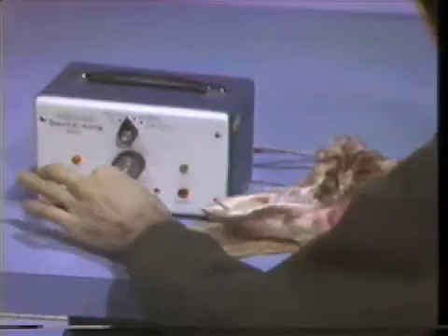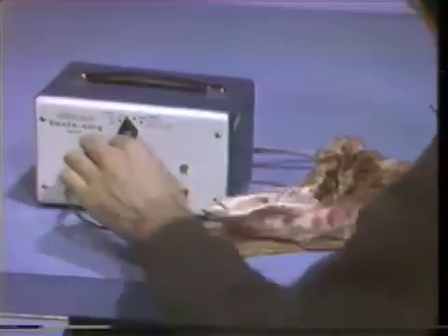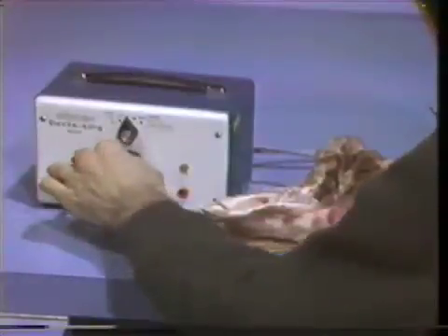However, the proper way to do it would be to have the terminal plugged into the active outlet. The power can be reduced because of the smaller diameter wire, and an incision can be made with almost no damage to the surrounding tissue.